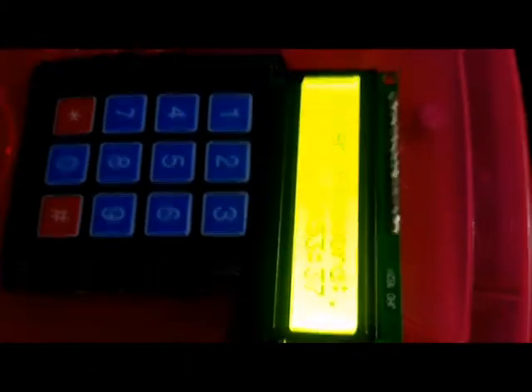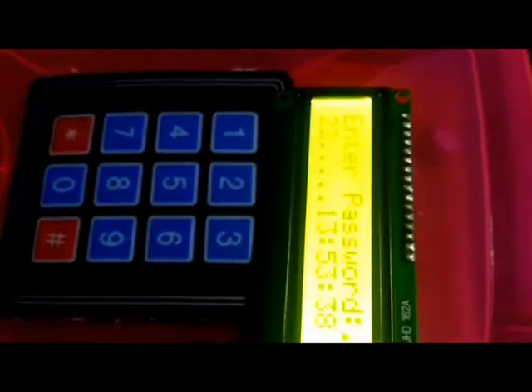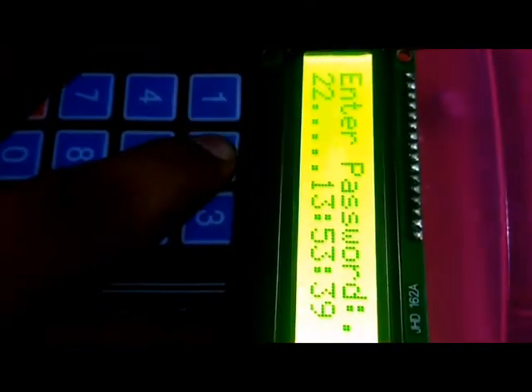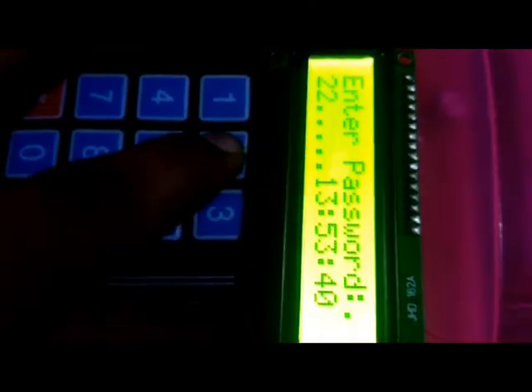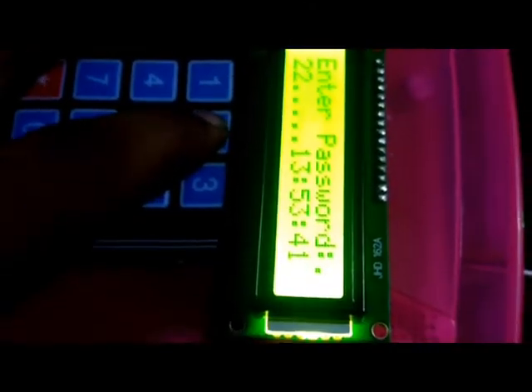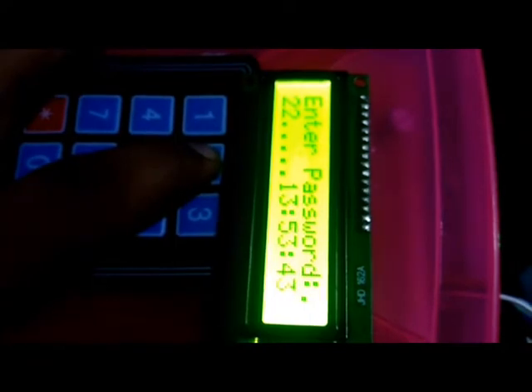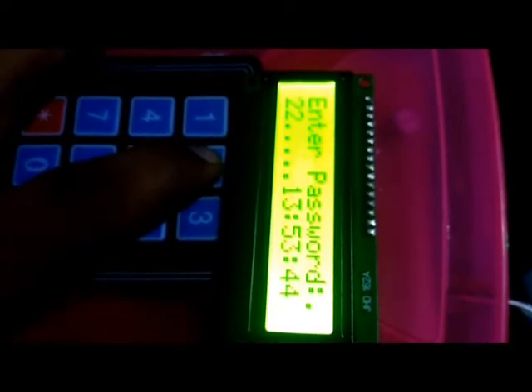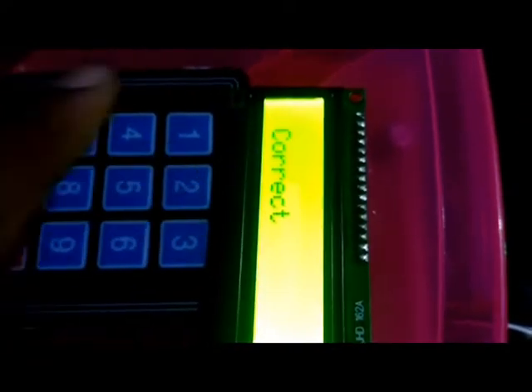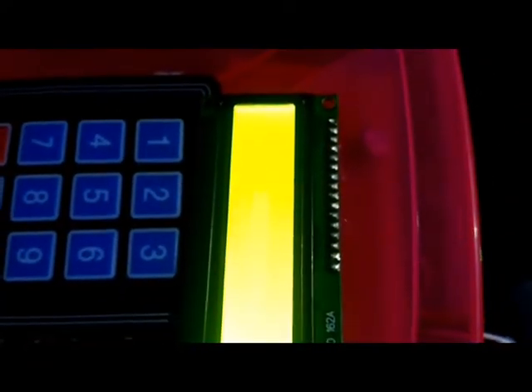The system here is the smart medicine box. It is authenticated by password. I am entering the password as 22222.